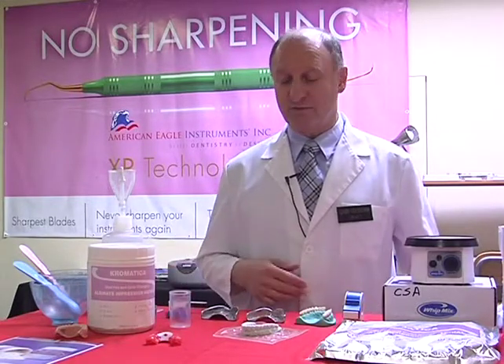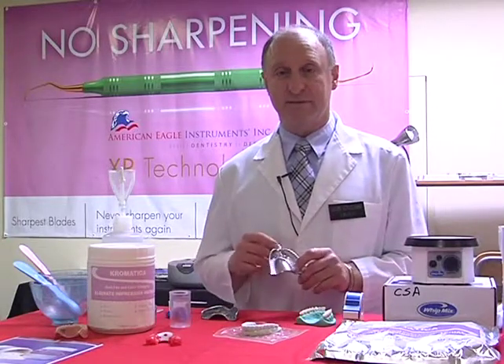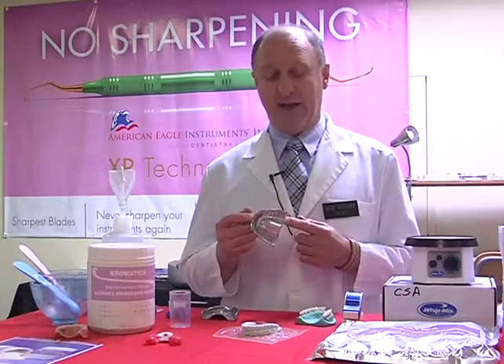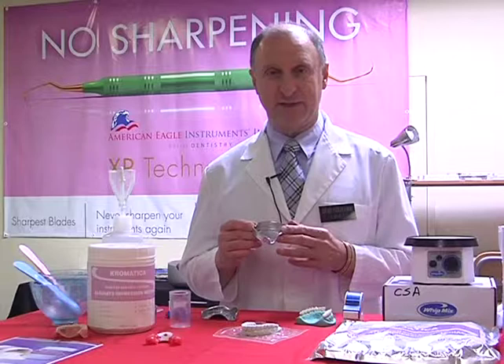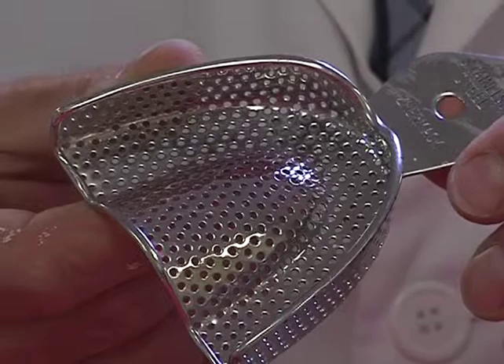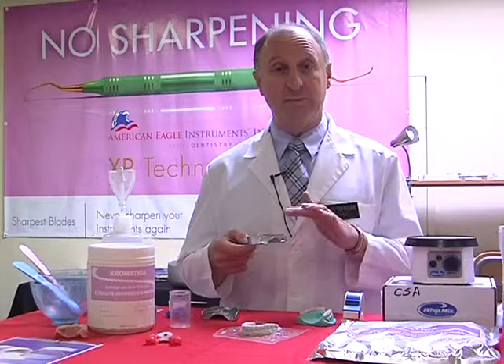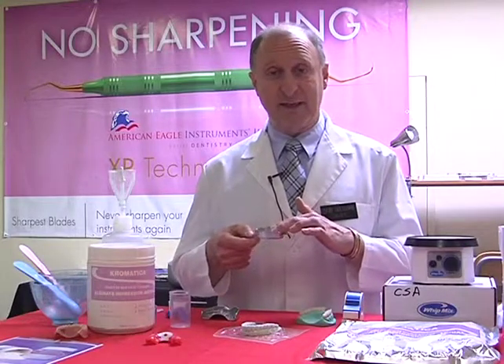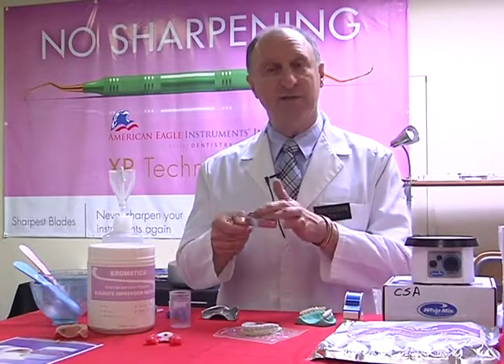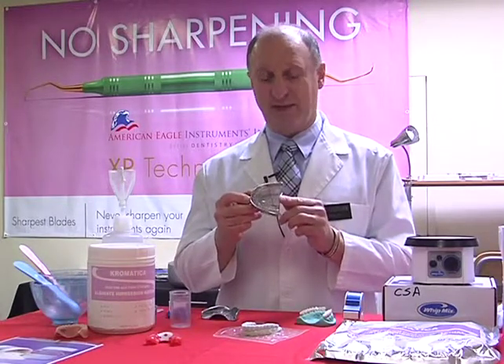There's a variety that we can choose from, and most people here in North America and Canada, I think most people that look at asepsis, sterilization, disinfection, use the perforated trays. I like to compare the difference between the perforated, the solid trays, and then we'll look at the plastic trays. Now, think of it this way. The perforated trays, which are considered the most popular types of impression trays in the marketplace, we put our impression materials, our alginates, inside here. They're then put into the mouth, and the material flows through the impression trays. So we lose compression inside here. This is taking what we call a mucostatic impression.